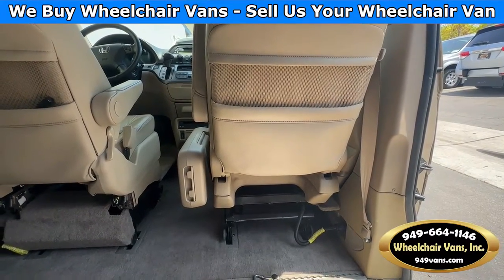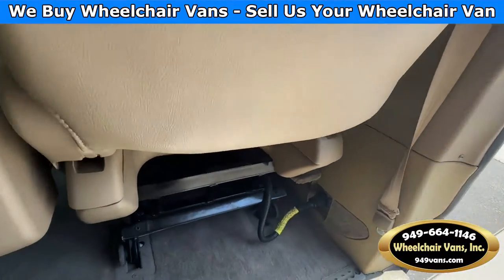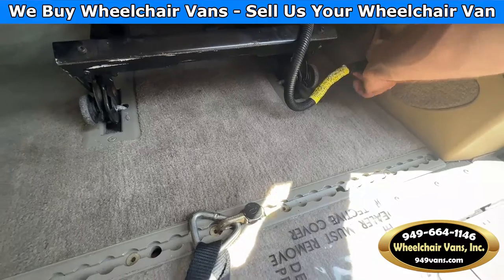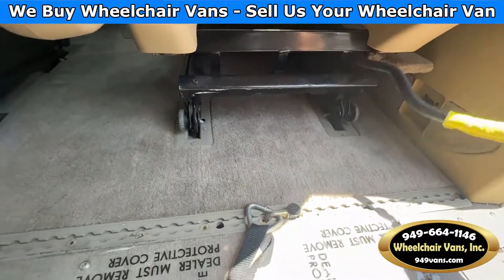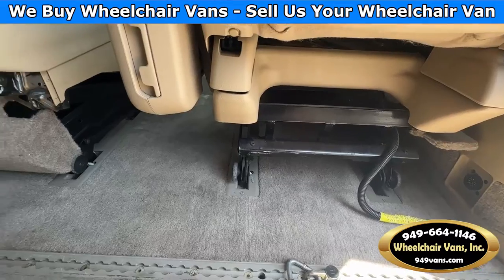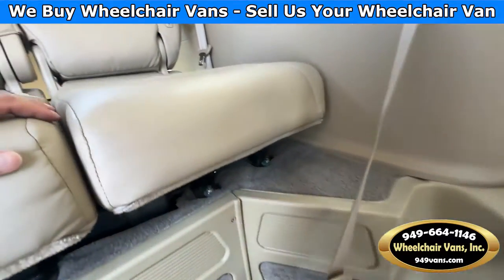If you would like to ride in the front position, you are able to do so. This chair is removable — the way you remove it is you will have this harness here on the side which you can twist and pull out like so, and then you will have a lever here which you can push down on, and the chair will be sitting on tires.